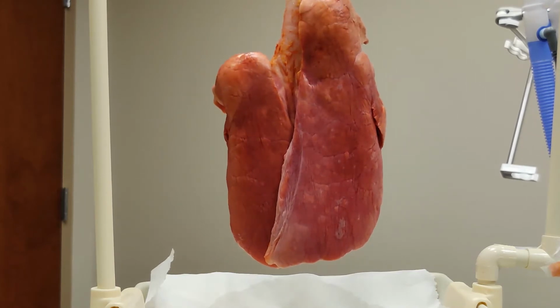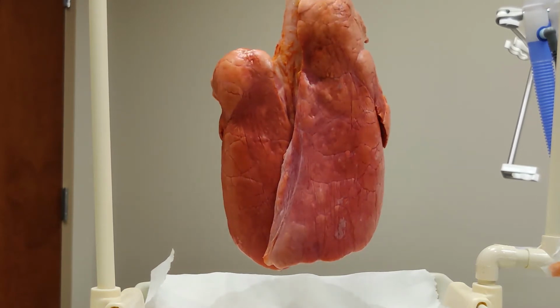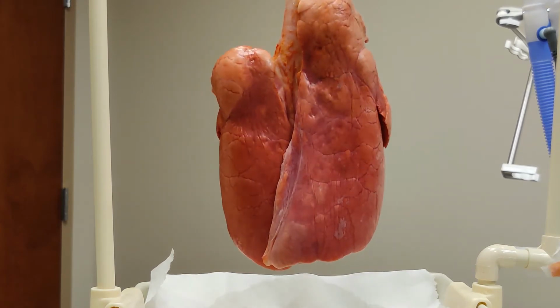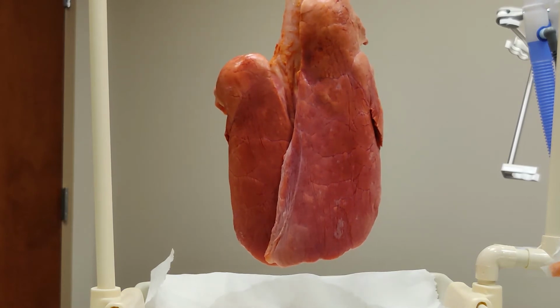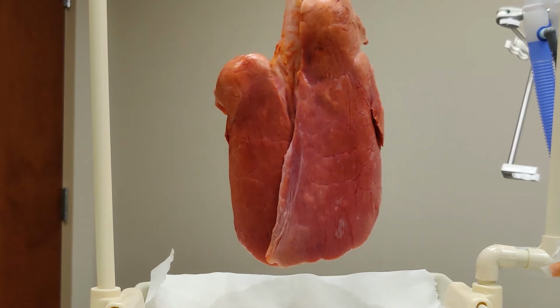So that's a peak pressure of 20. Every breath that these lungs take will be a pressure control of 12 over a PEEP of 8. Based on that and the I time, we'll get an exhaled tidal volume, but that will not be in any way set; it'll be a received value.